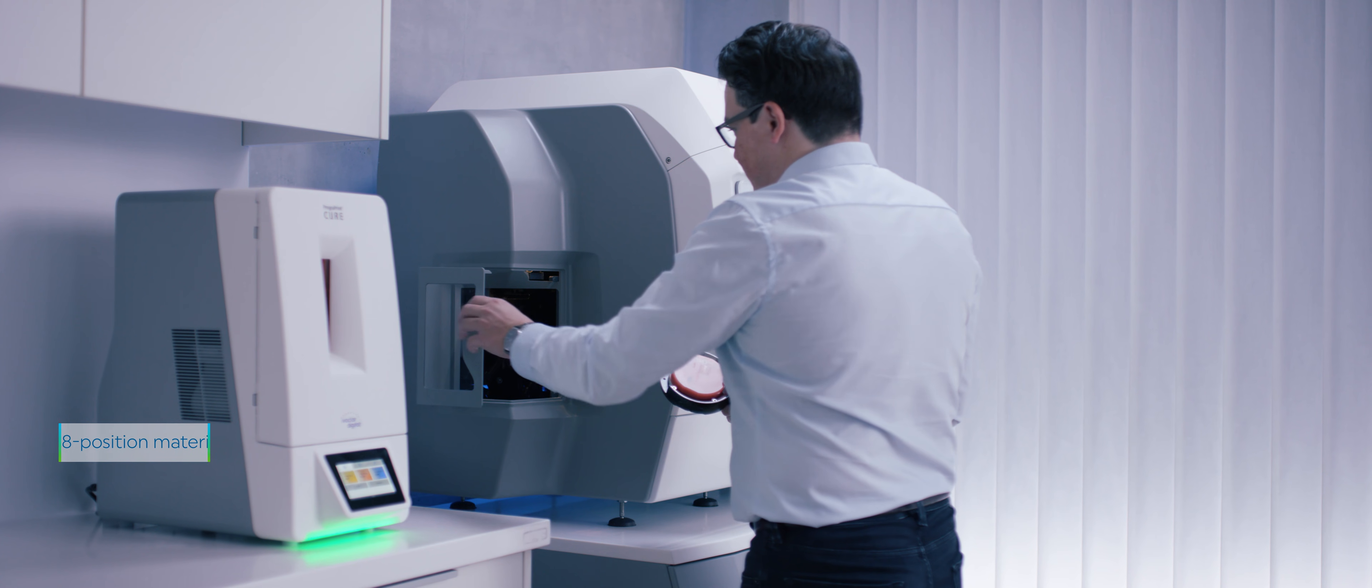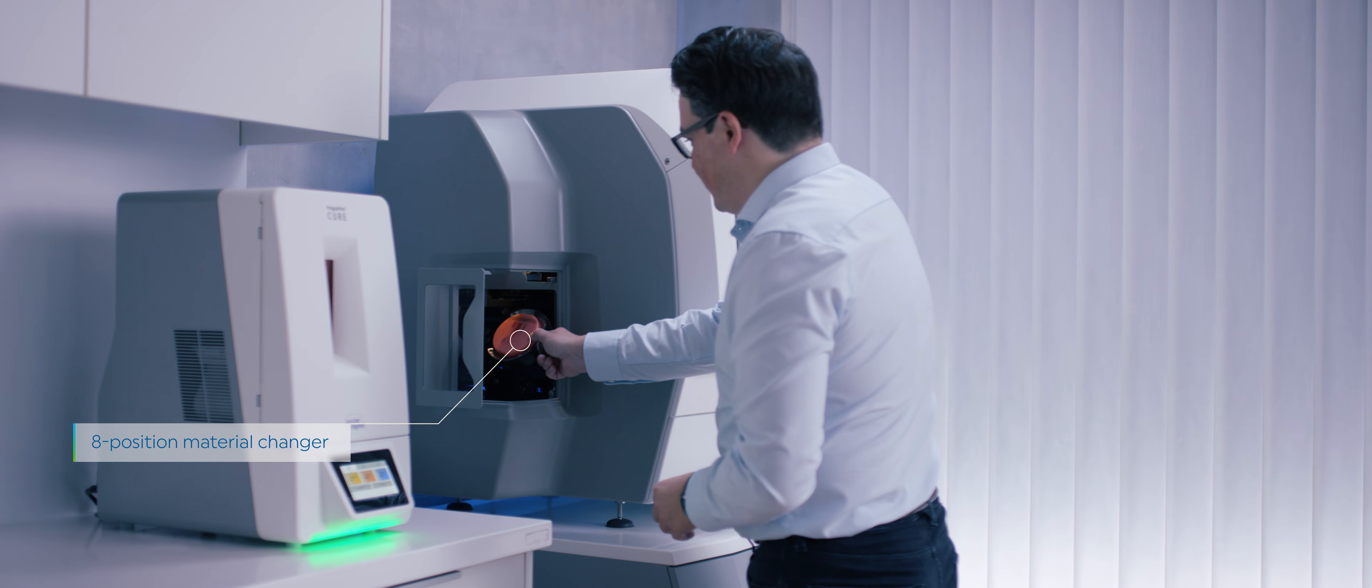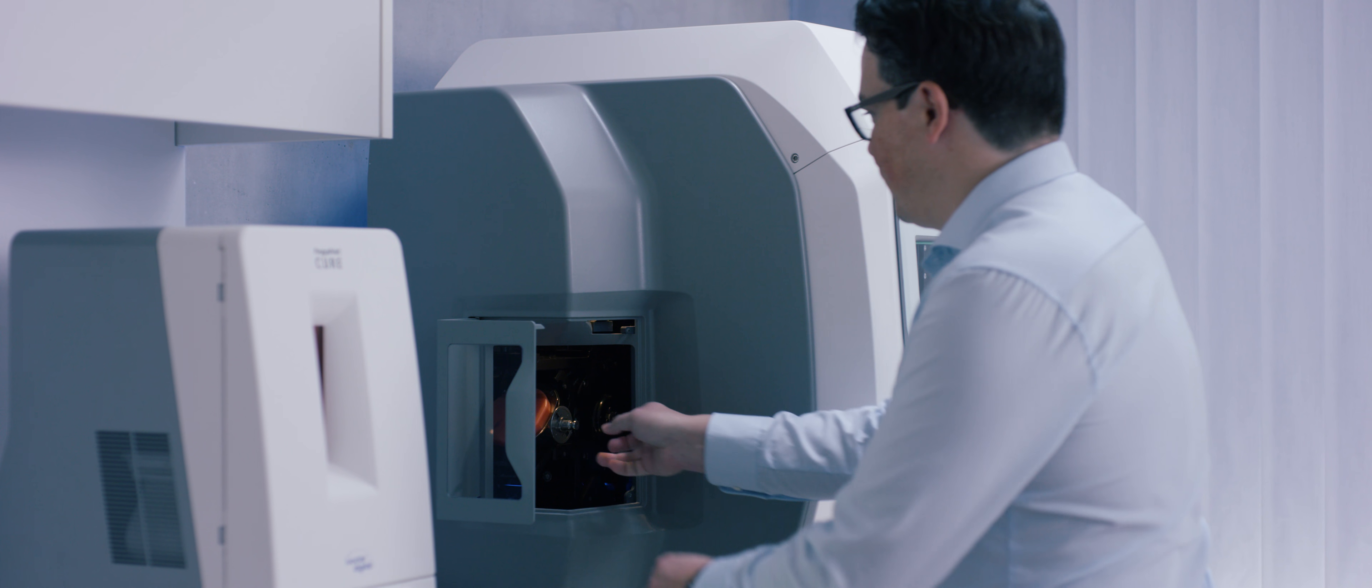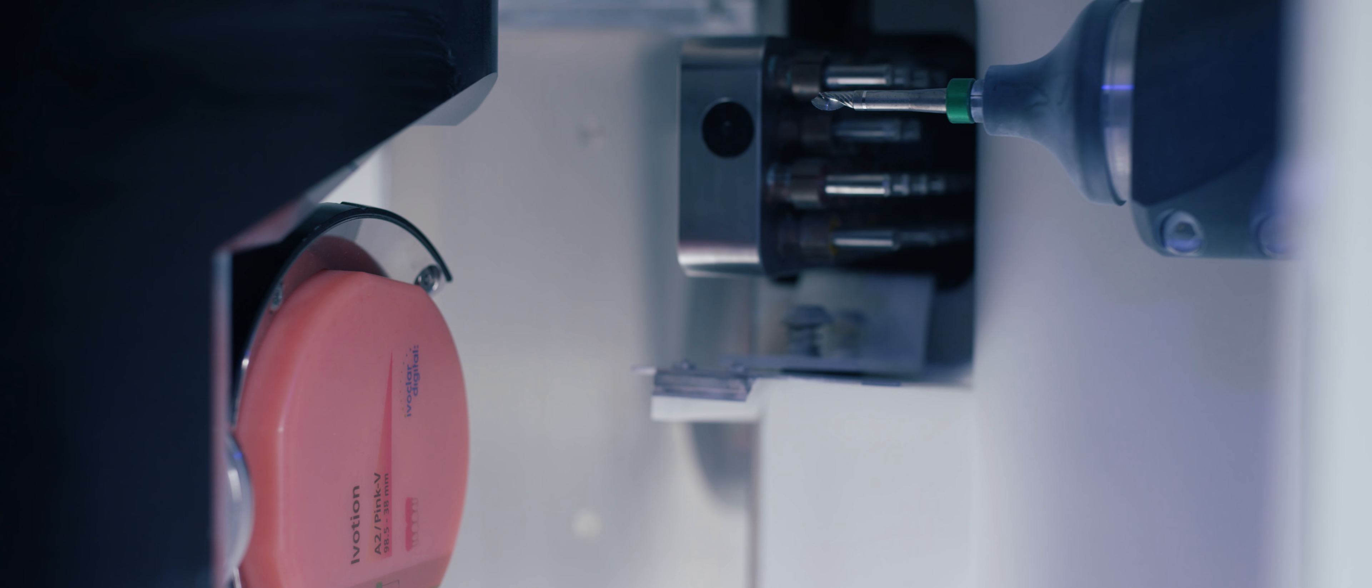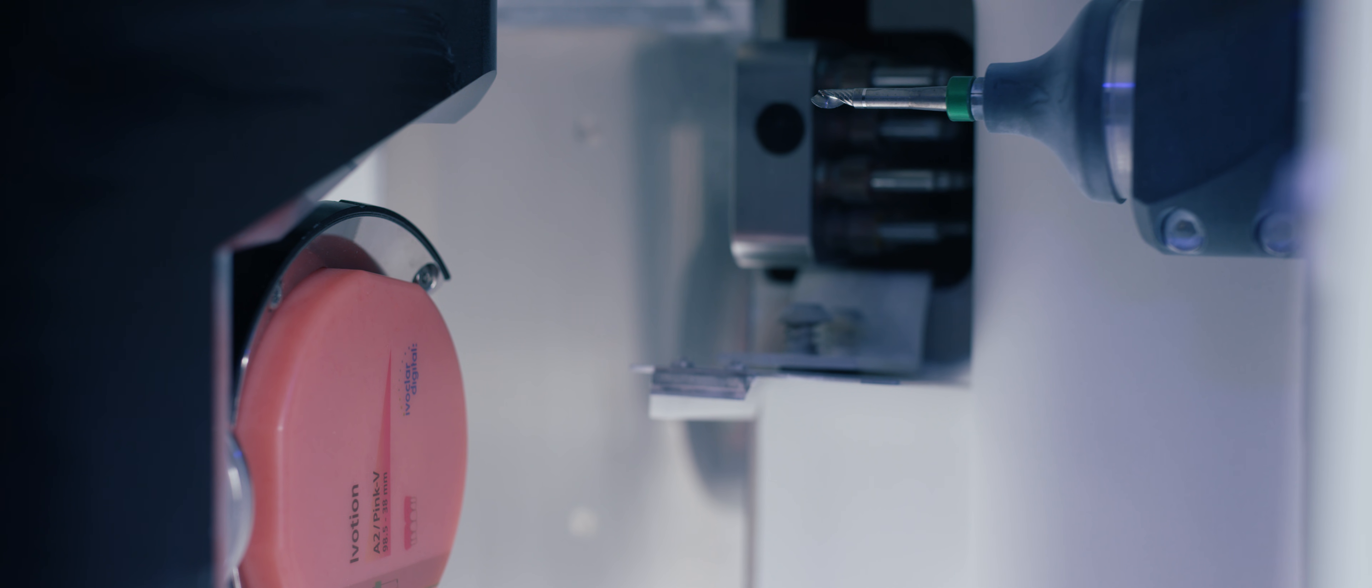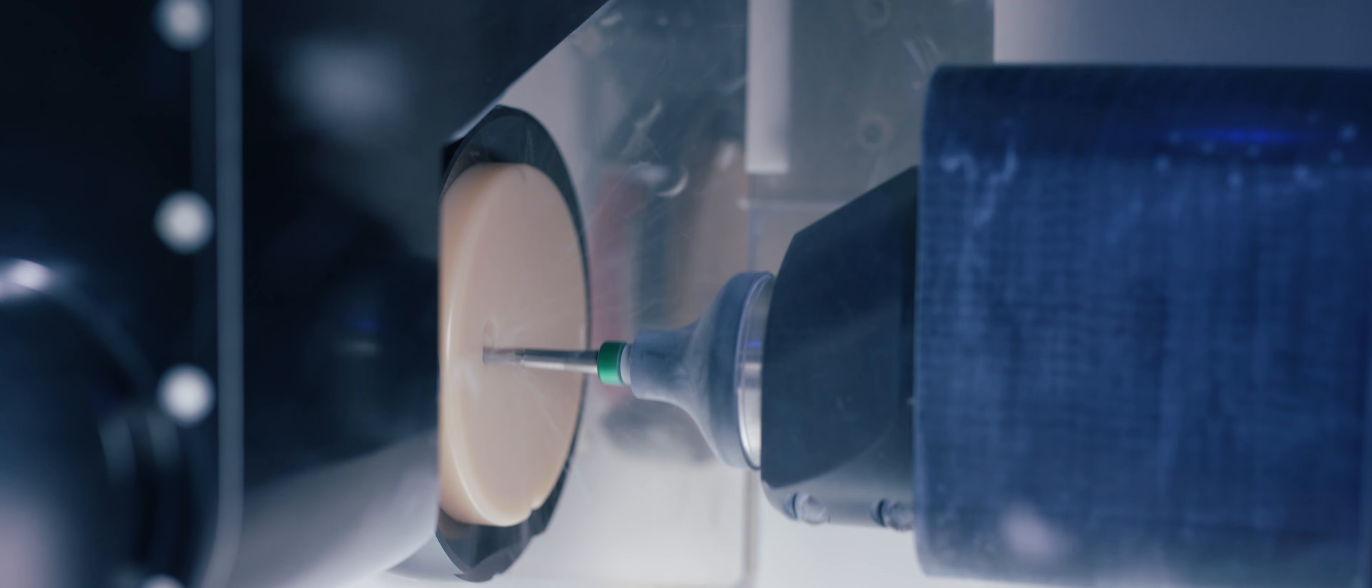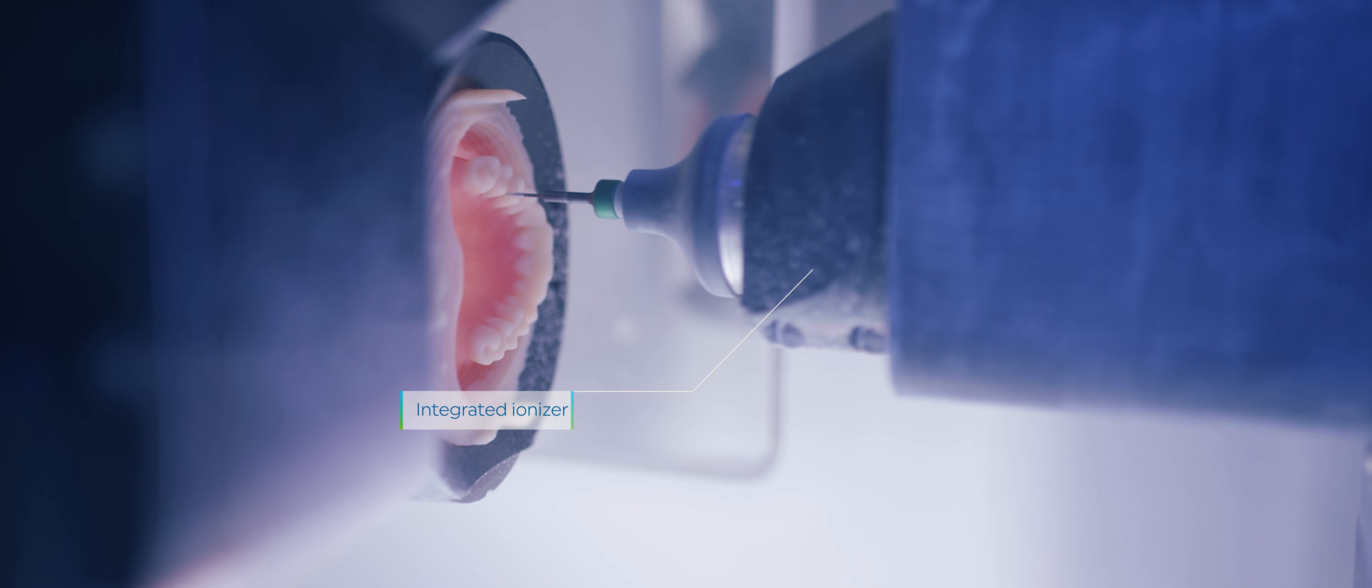After the denture has been designed, the monolithic denture is efficiently milled in an uninterrupted process in a program mill machine. In combination with big data, material competence, and software capabilities, this powerful high-end solution works to produce high precision dentures of remarkable quality.